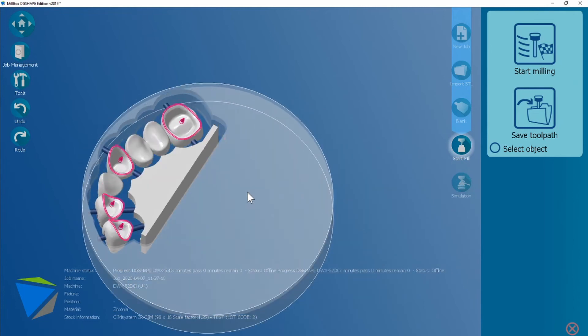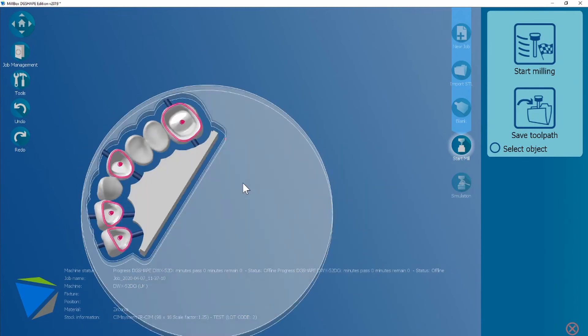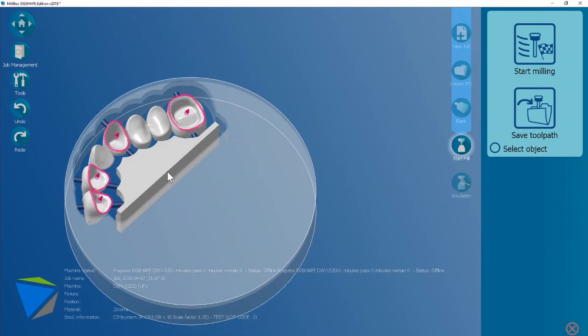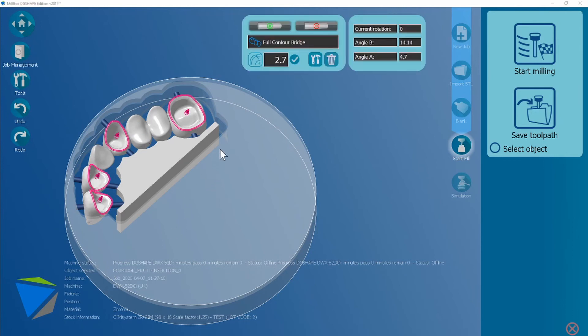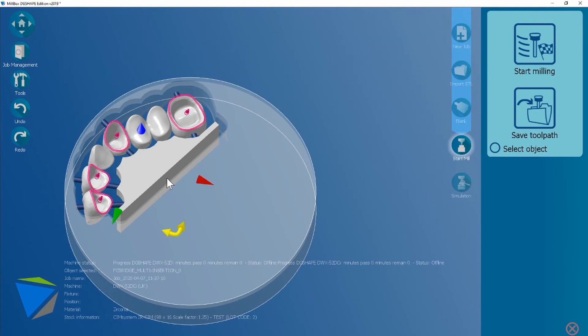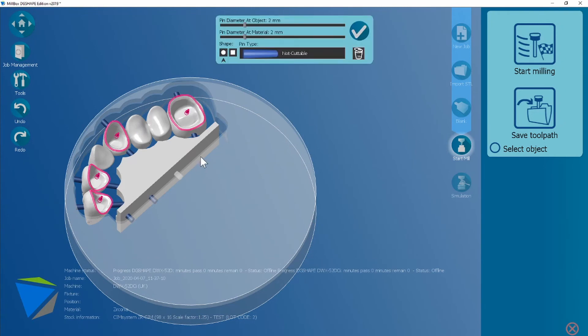The next thing we'll need to do once you're happy with the selection of stabilizer is add a few connectors. As you can see, a stabilizer does not come in connected to the disk. So if we click on the job, press add on the stabilizers. I'm just going to add in a couple along the back here. That should keep it connected to the disk.